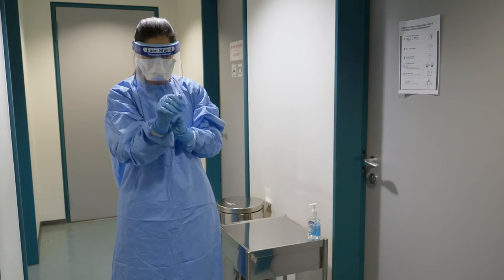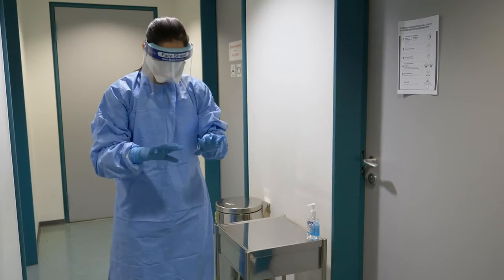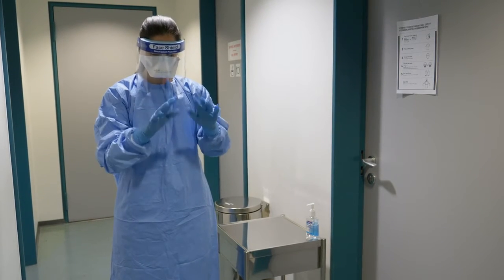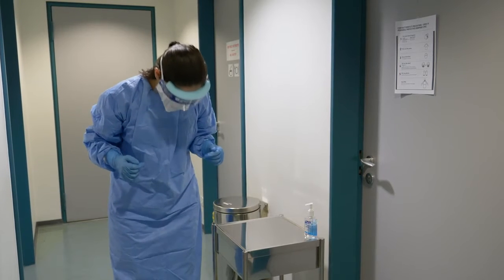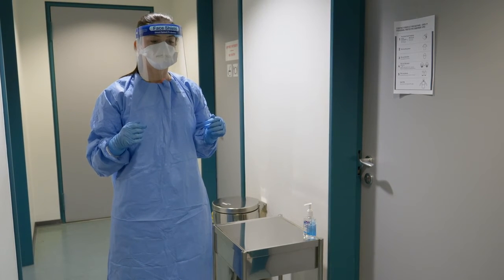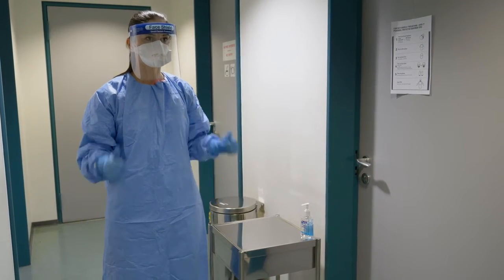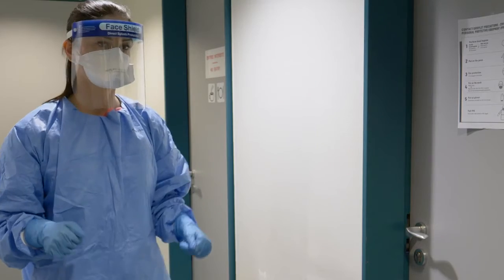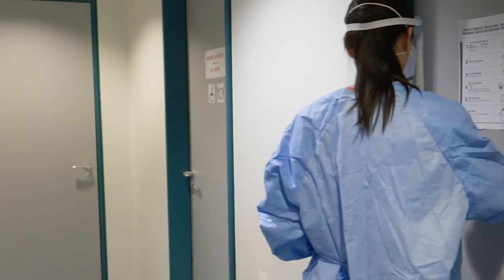You must check each piece of equipment thoroughly at the end and ensure the equipment is placed on correctly. It might be helpful to have a colleague who is competent in this procedure perform a visual inspection. You are now ready to enter the patient's room.